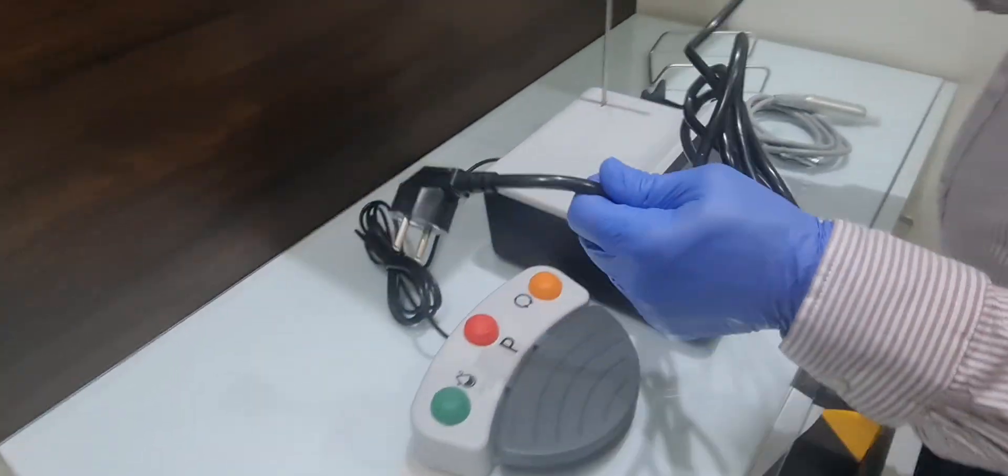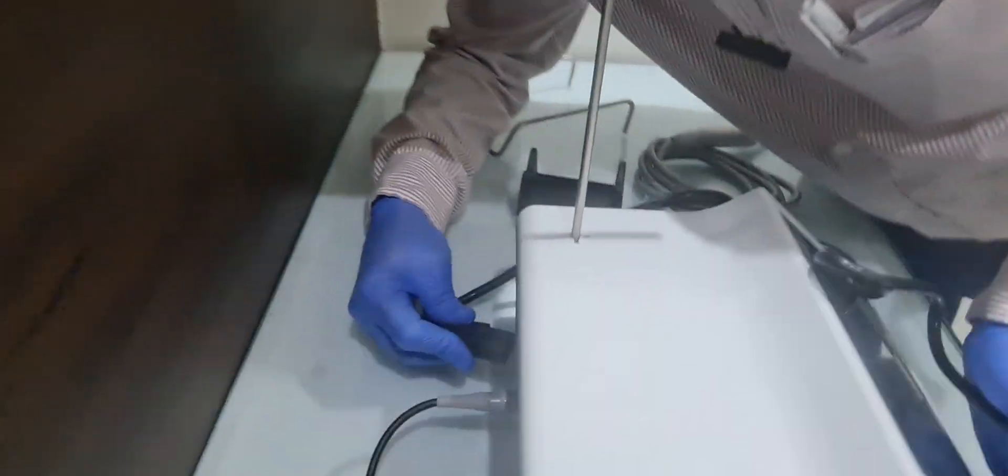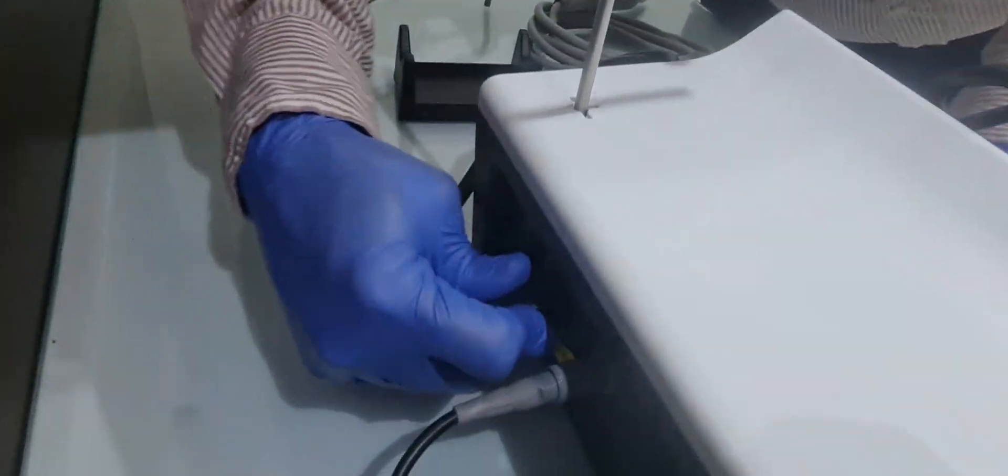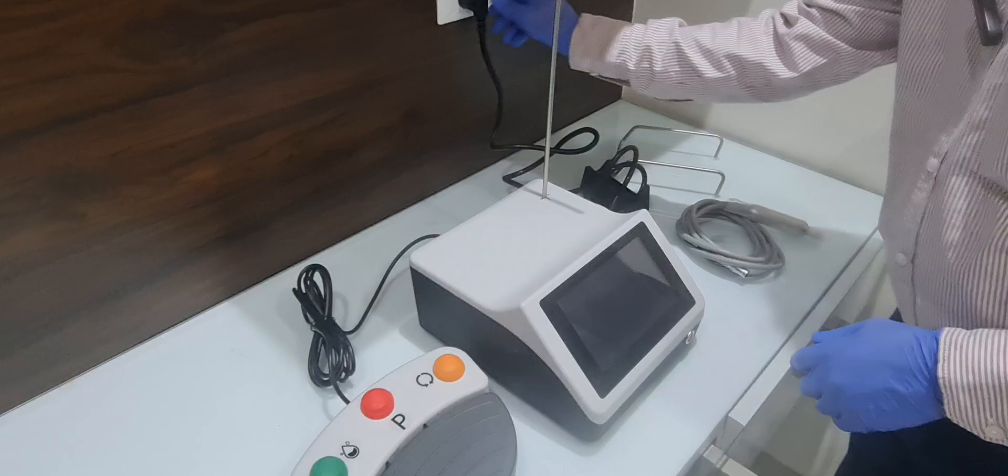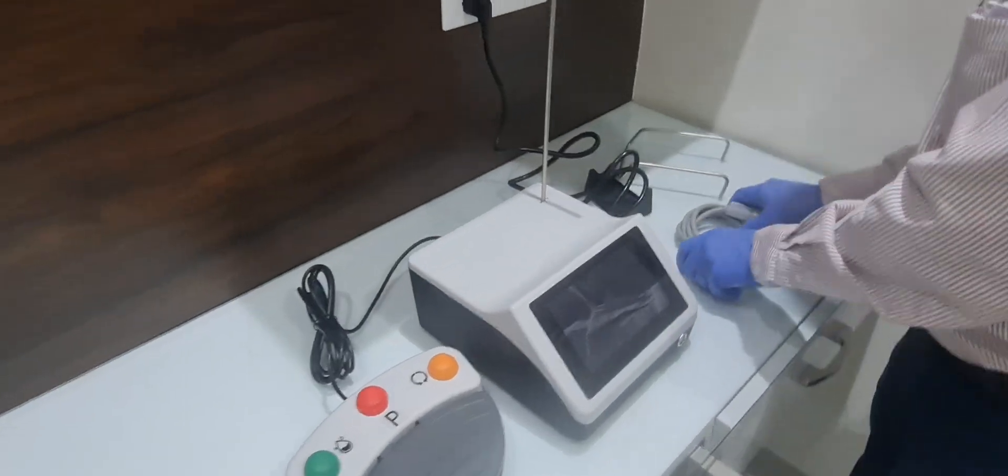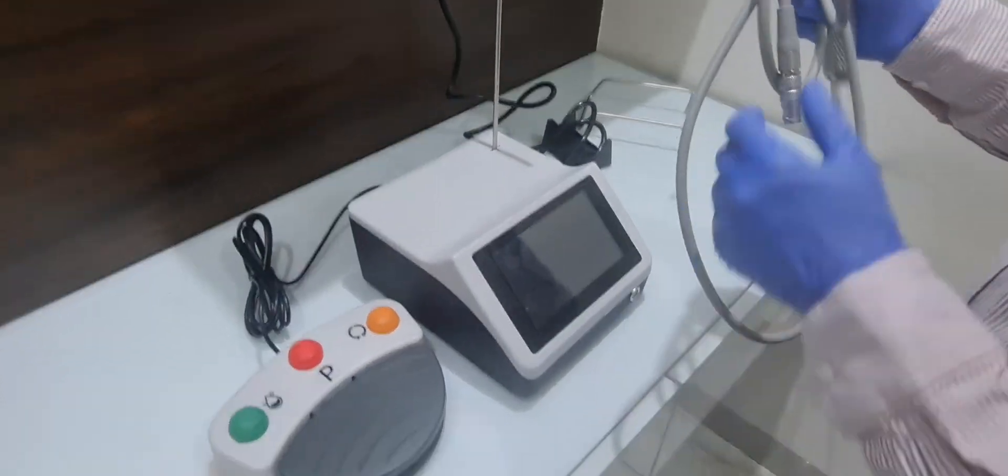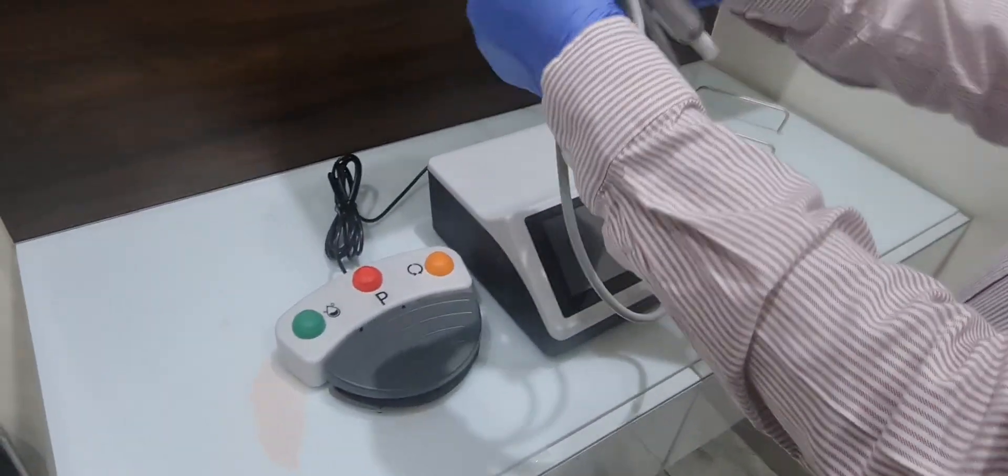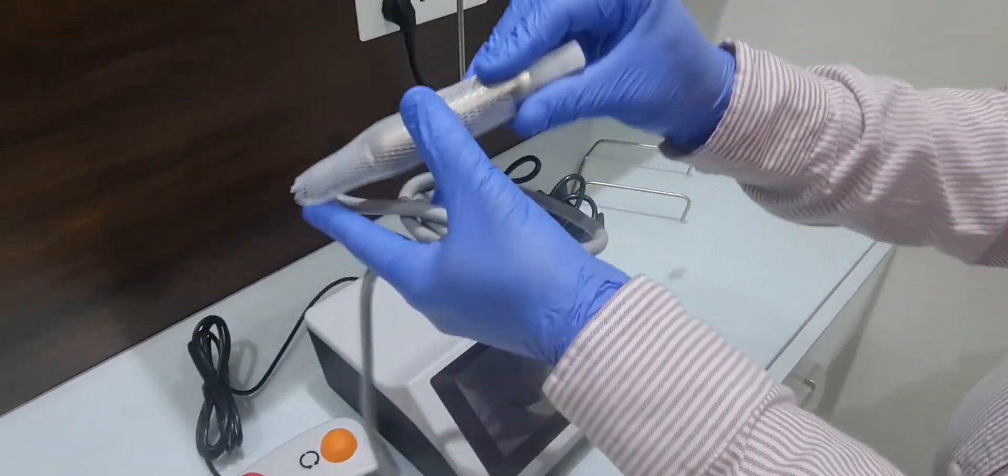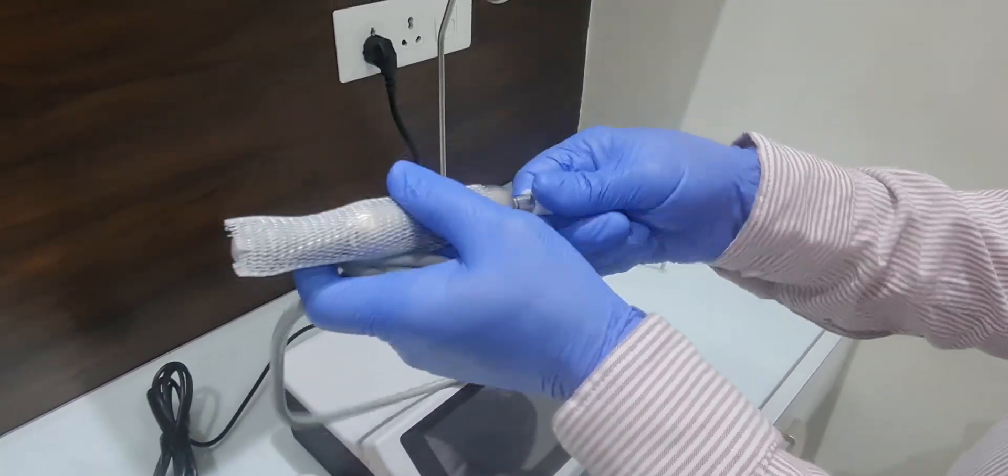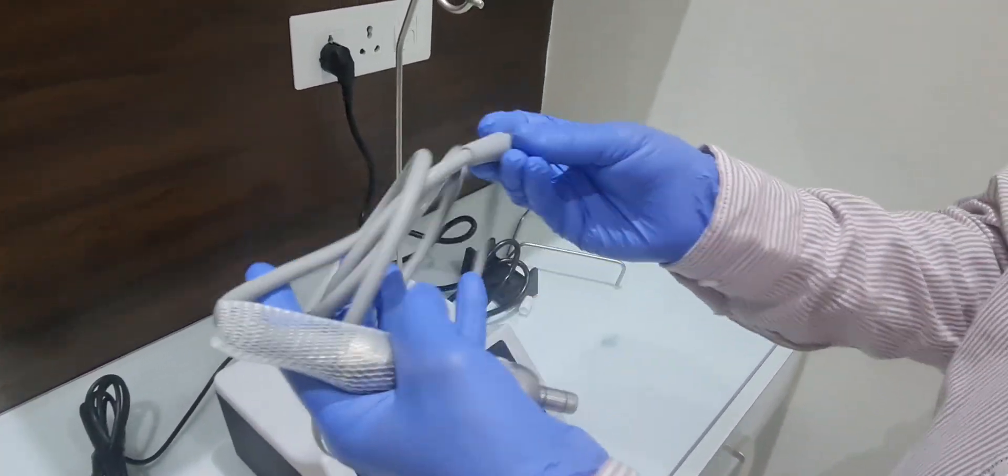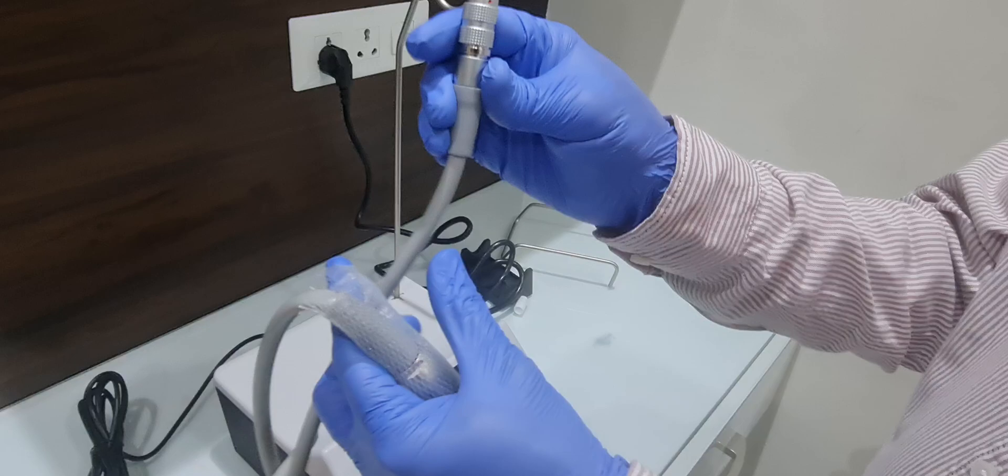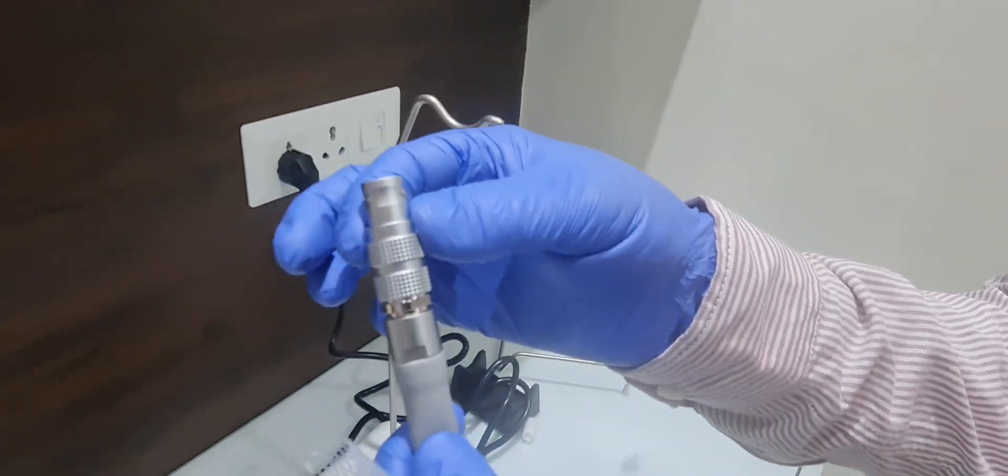The power cable. And this is an implant fiber optic motor. This is autoclavable, as it comes with the stainless steel connector.